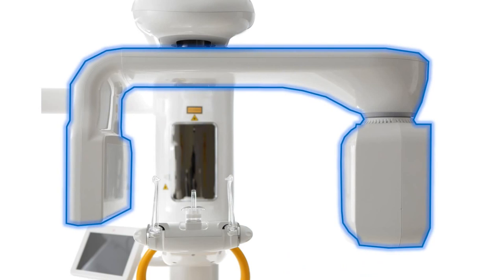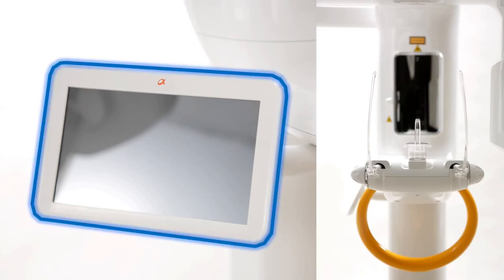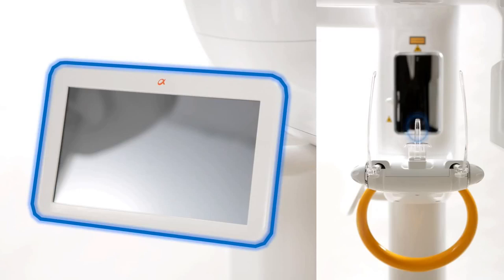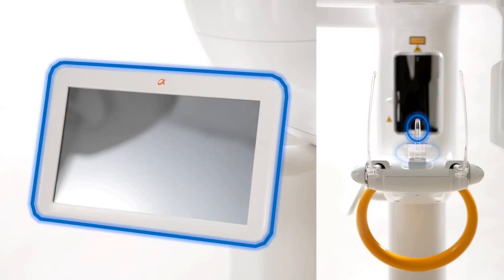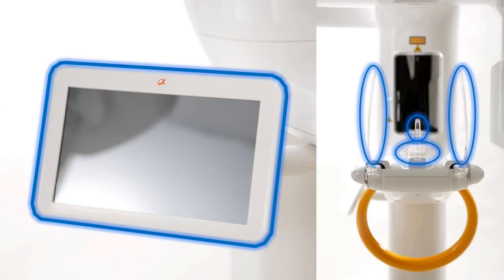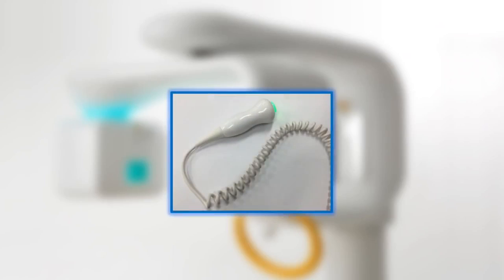The system includes the rotating unit, touchscreen, and easy positioning items such as bite stick, chin rest, temple supports, and hand grips. Finally, the exposure trigger.